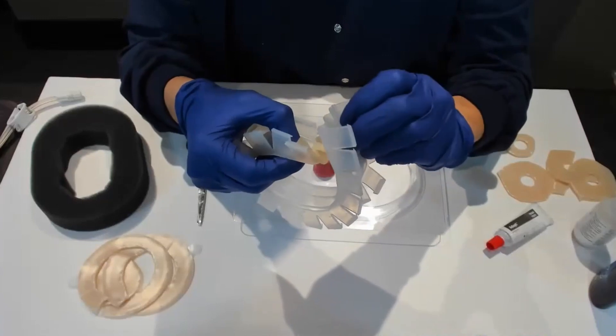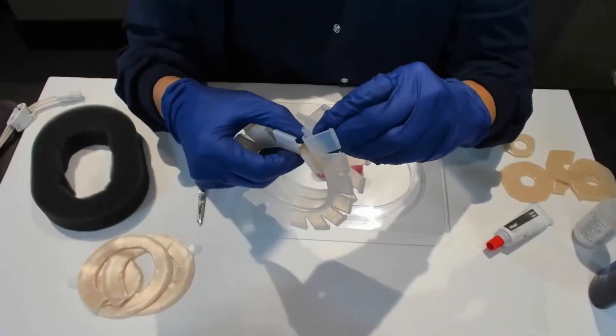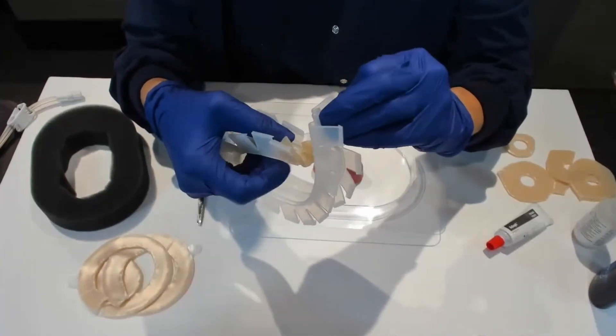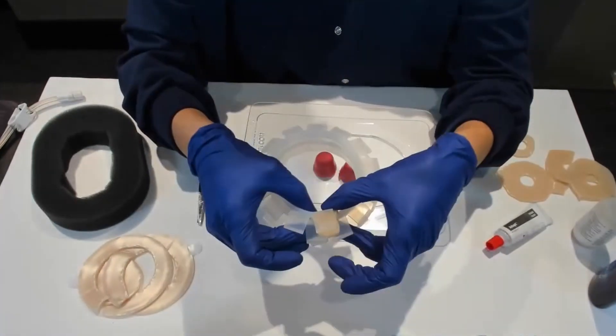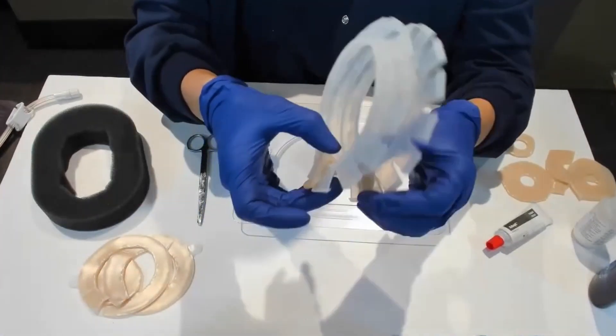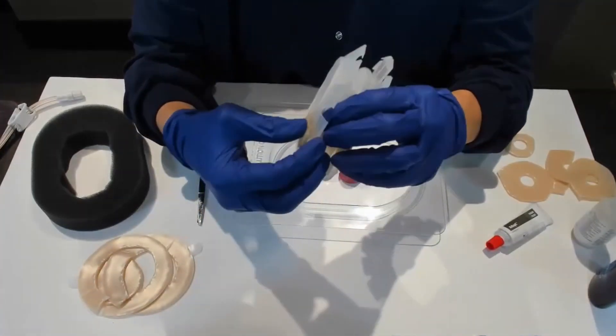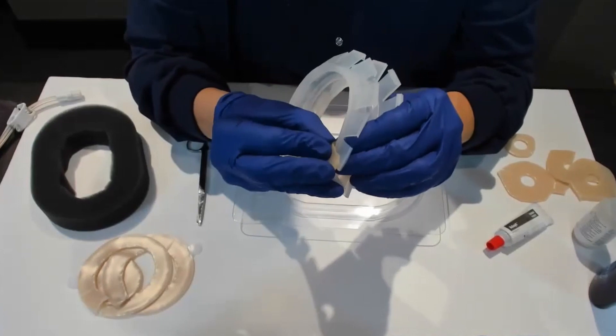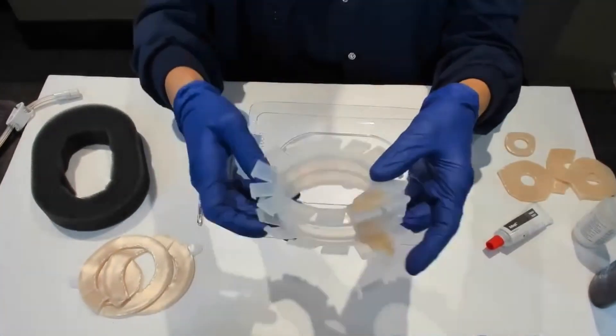Then you're going to bring in your second piece and they're going to lay on top of each other in those same little crazy grooves. You probably want a couple petals overlay. I'm just making sure that where it attaches to itself, there's no air leaks. That's what it looks like on the inside.